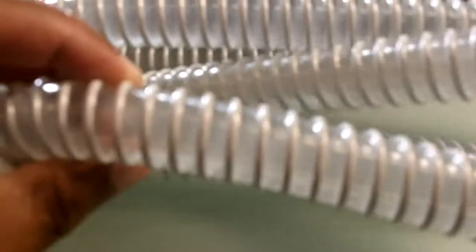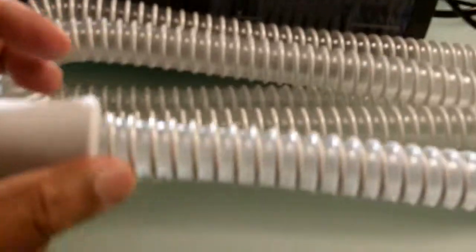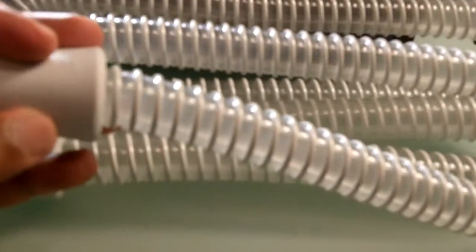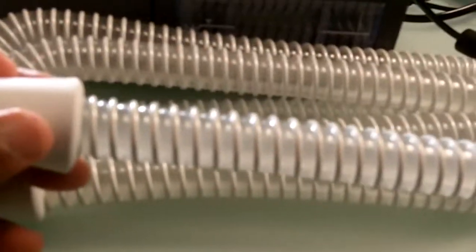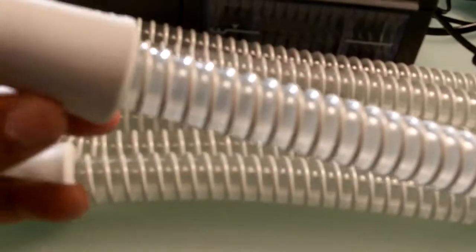It is incredibly lightweight. I think this is definitely one of the lightest tubing there is out there. It's a 22 millimeter diameter tubing.